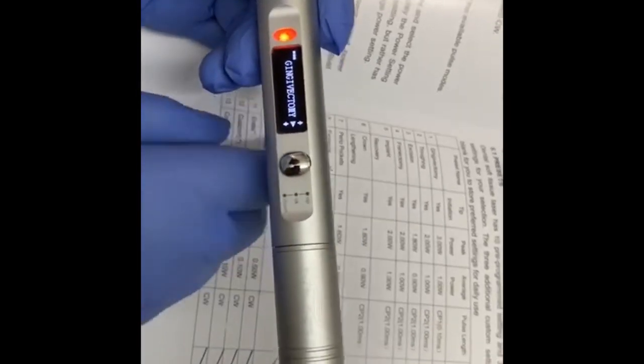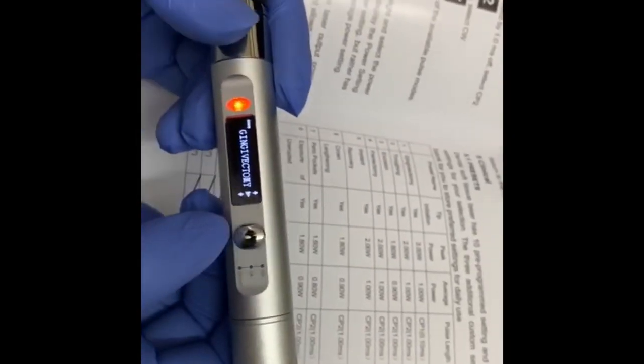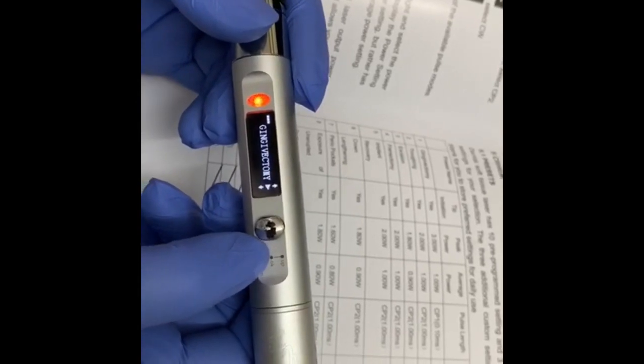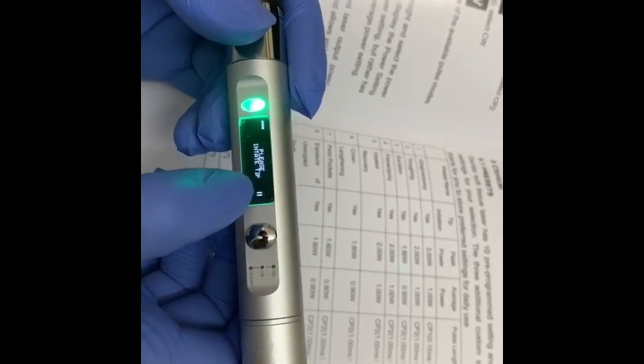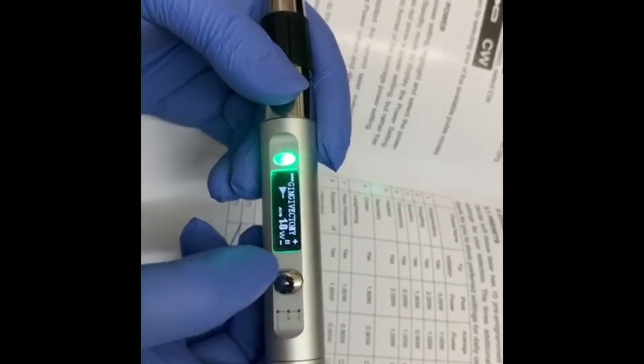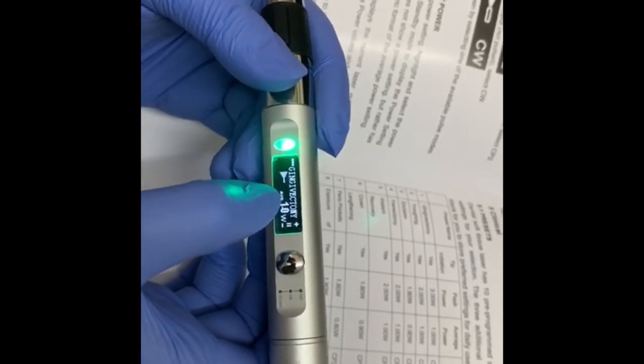So like if I am placing this on gingivectomy, you can see that I need to press this button. So it's written please initiate the tip. I think it's ready to use right now. Again we need to press this button.